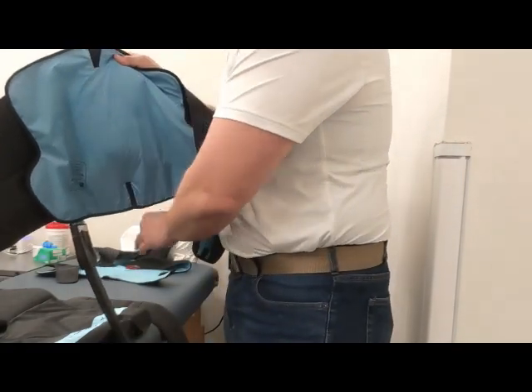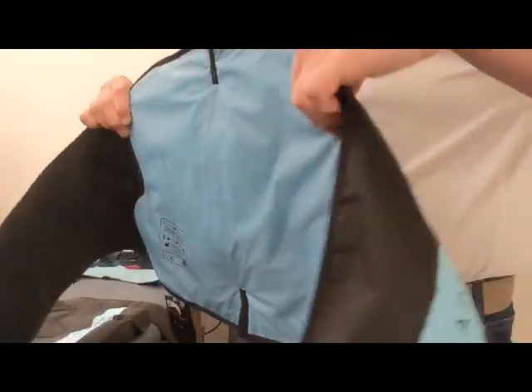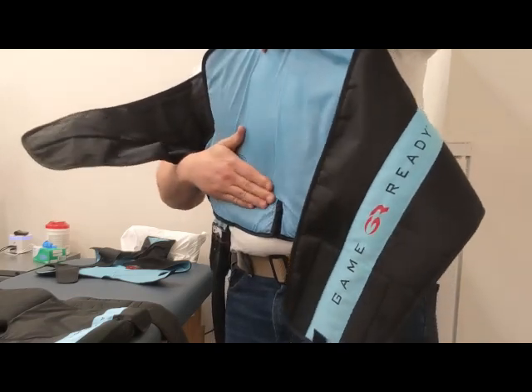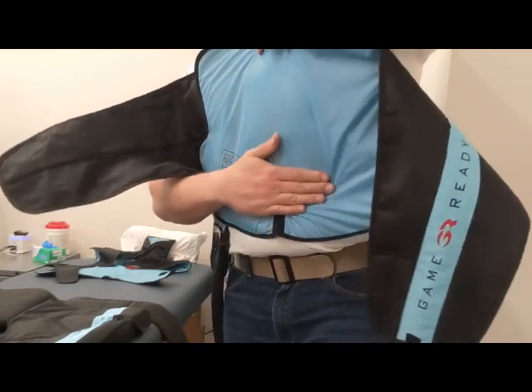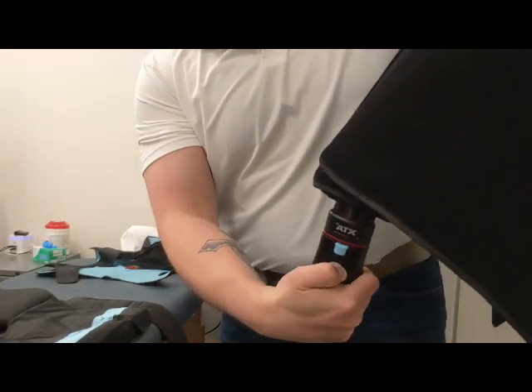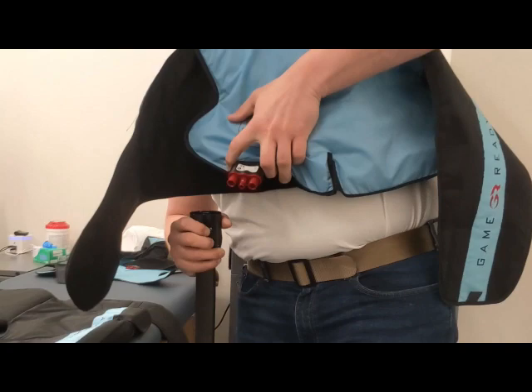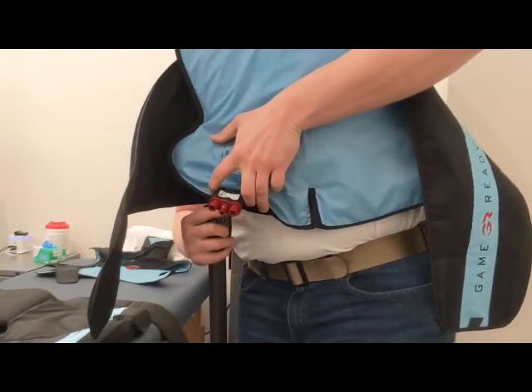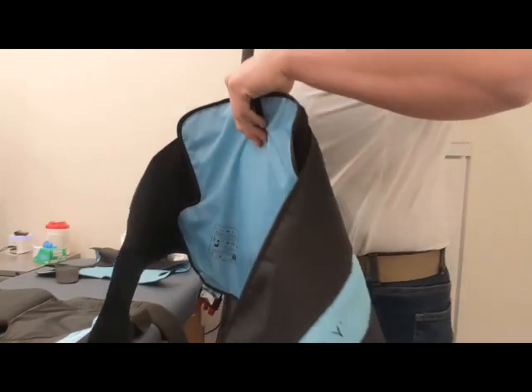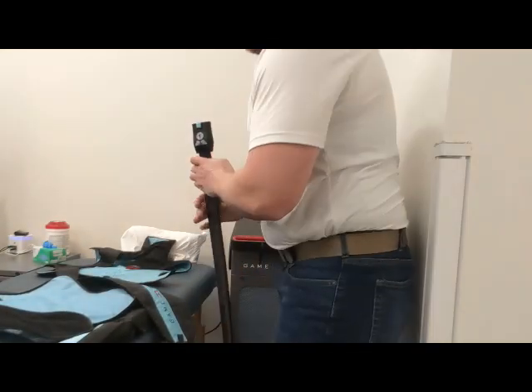After the cryotherapy is done, be mindful to keep the dongle up. You can see where the cool met my lower back — it sweated a little. Push a little extra to drain out the bladder. When you disconnect it, remember the little blue button. There'll sometimes be a little residual water hanging around, and that's also why these hoses hook up the way they do.